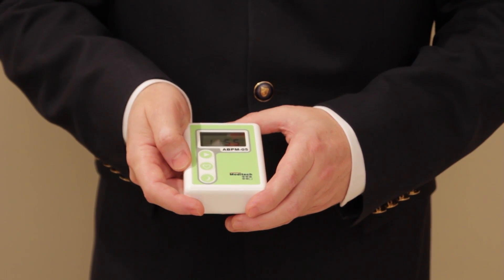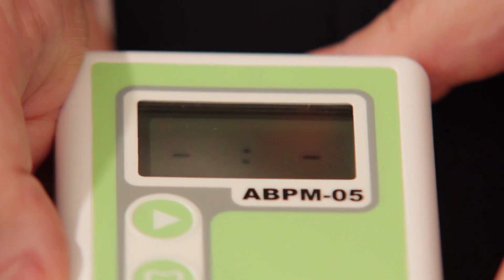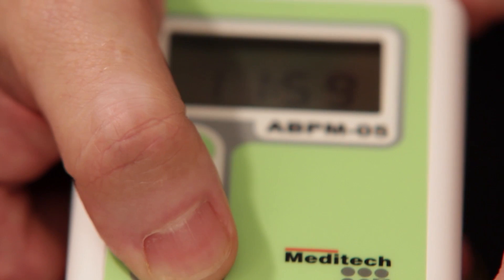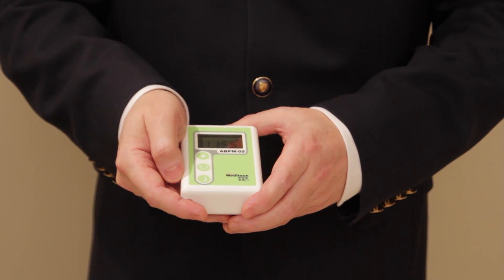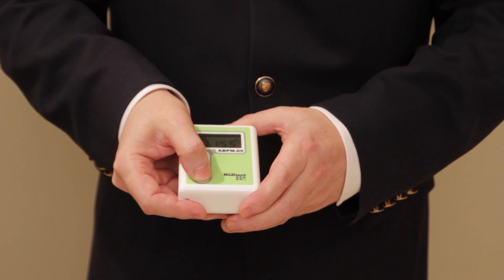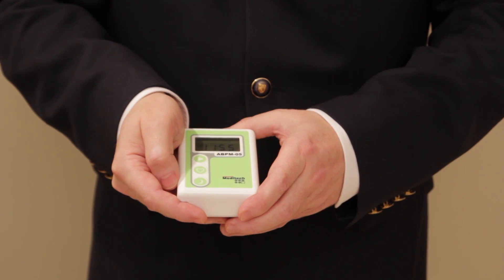If you press the event marker button to set an event, the LCD will show it with two dashes, displayed for a short time. If you want to switch the device to night mode, the crescent moon will show that the device is now in night mode, if so programmed. To cancel night mode, press the same button once again and one beep is audible.